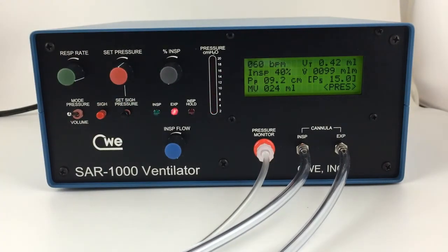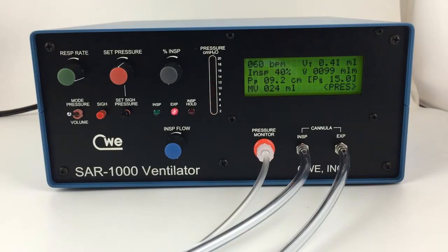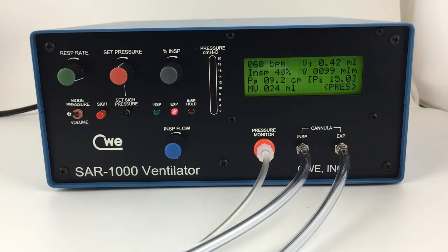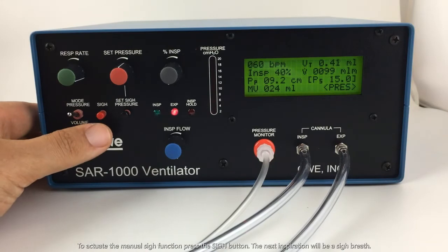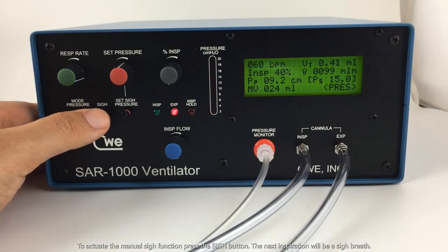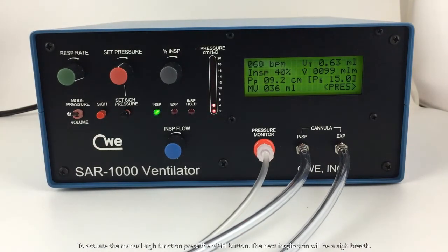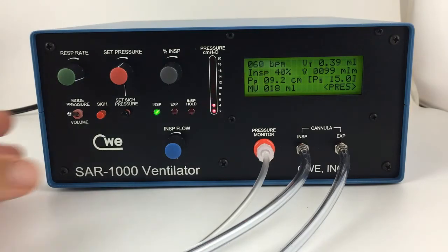Now that we have the sigh pressure set, we can use the manual sigh button. The next breath after we press the sigh button will be a sigh breath. And we can see that it worked.